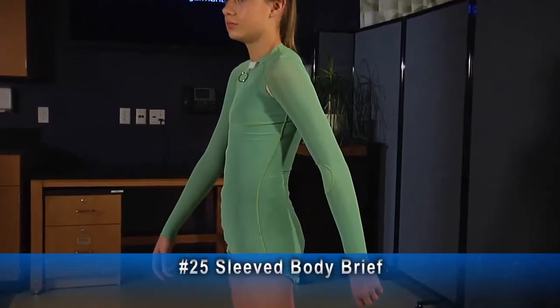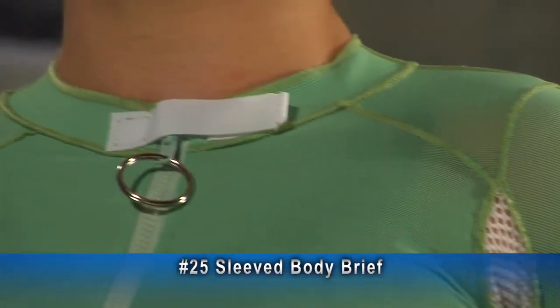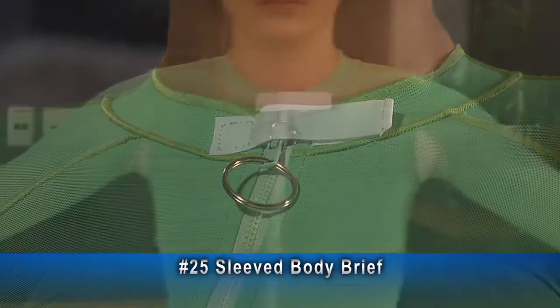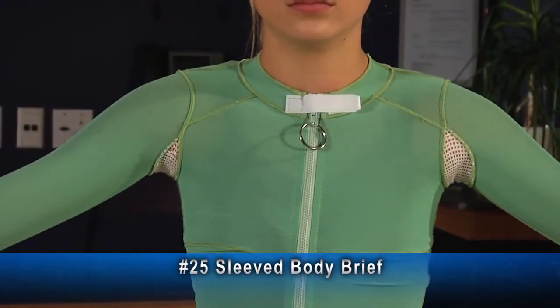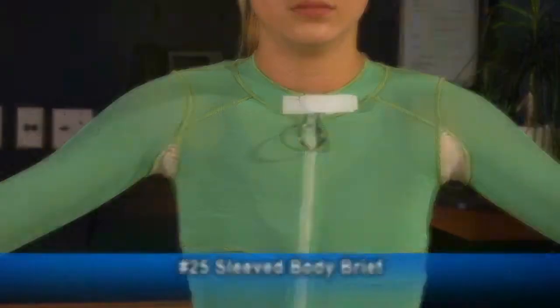Item 25 is a sleeved body brief. This example has a front zipper with a Velcro tab at the neck. There are mesh gussets in the armpits, in addition to the zipper tab and pull ring.